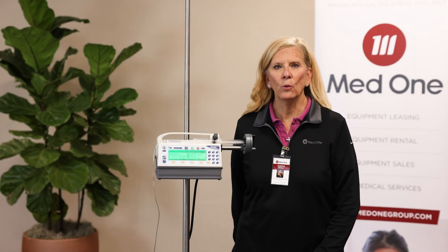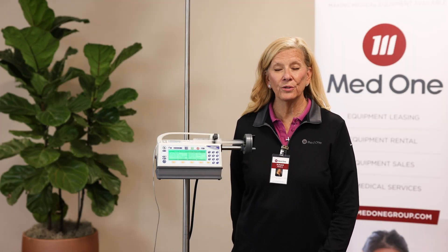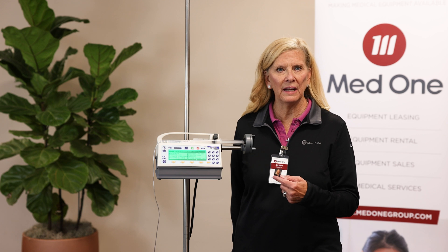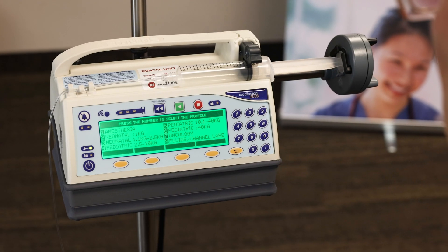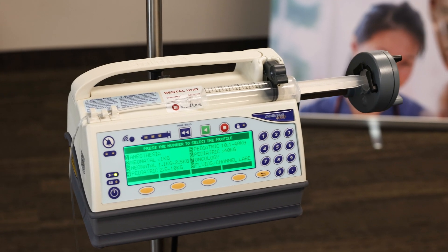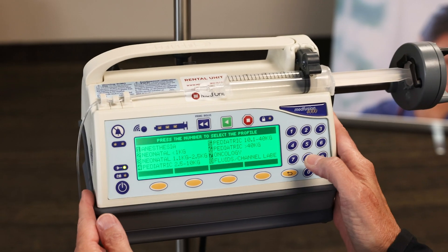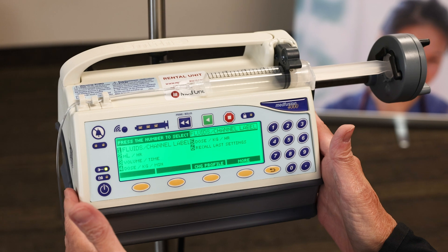I'm going to demonstrate what you would do if the drug you're ordered to give is not in the library, or the flush feature is not enabled in the software, and you needed to program a flush. I've already loaded a syringe and attached my tubing. We're going to choose profile number eight, fluids and channel label, because this drug we're infusing is not in our library.